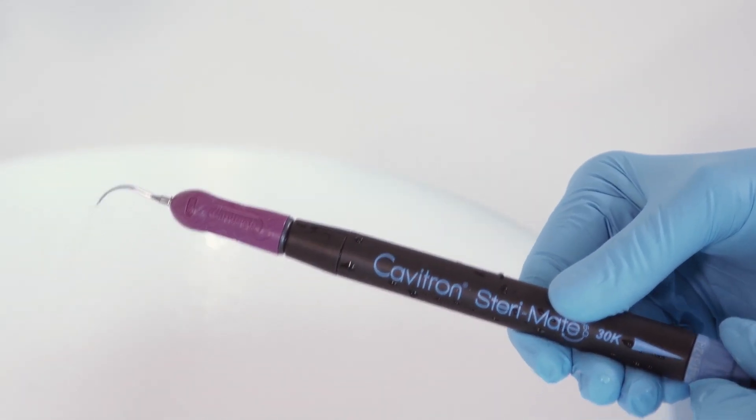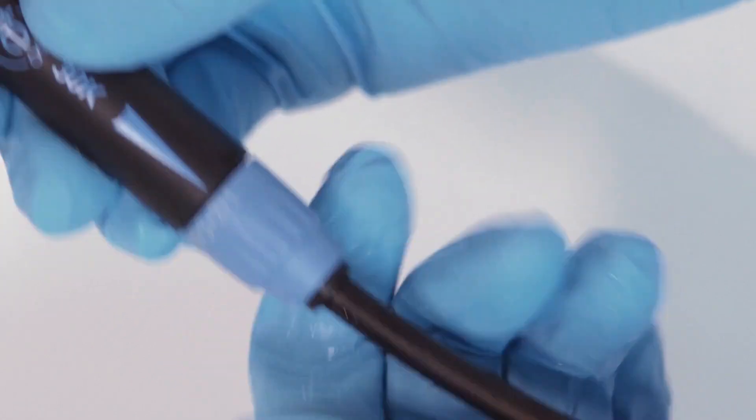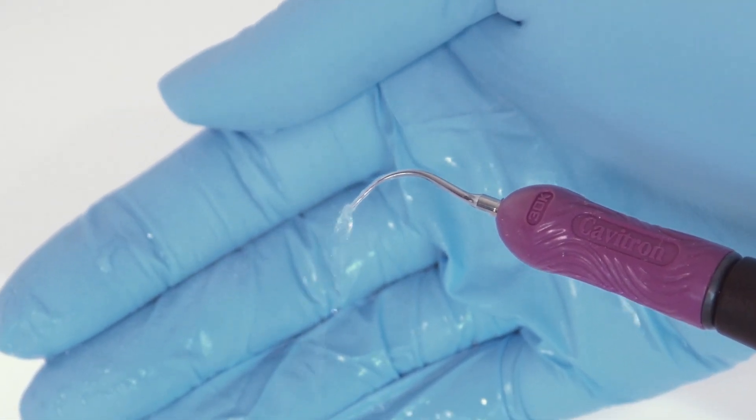On the handpiece connector, you'll find a water lavage control, allowing for easy adjustments without turning away from the patient.